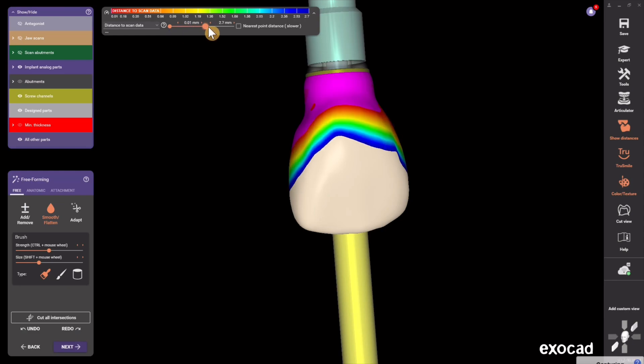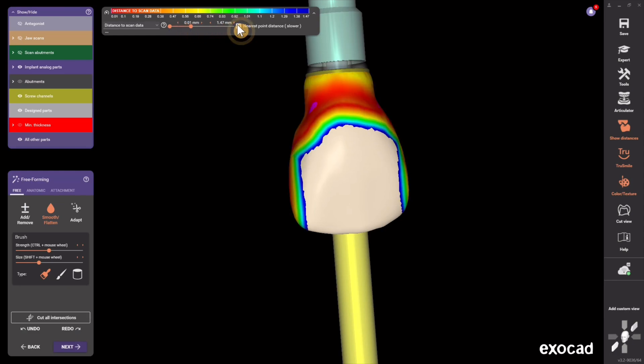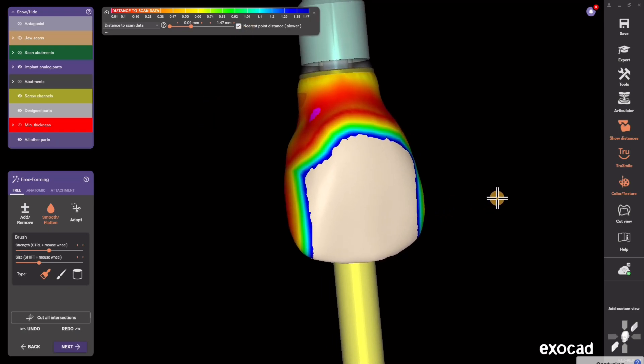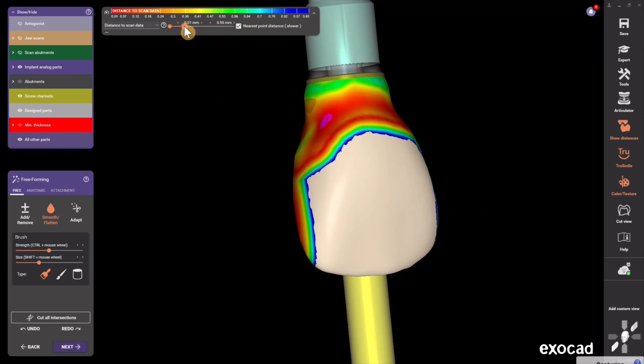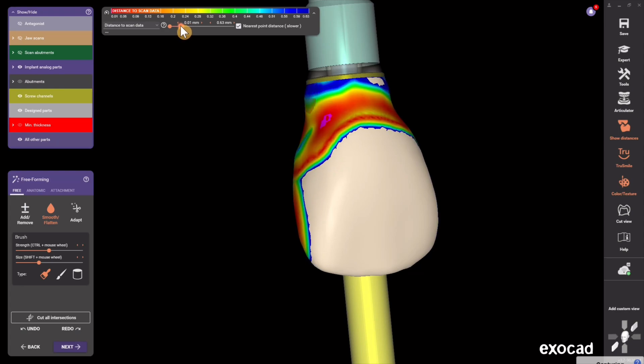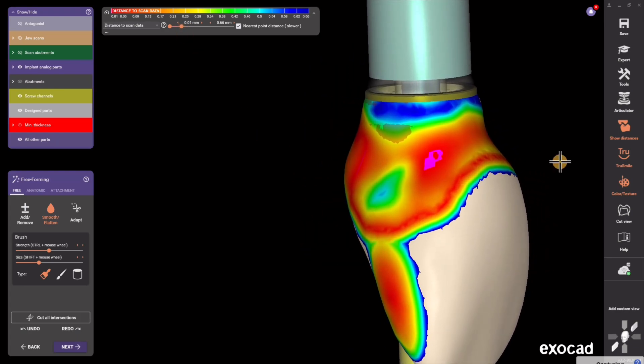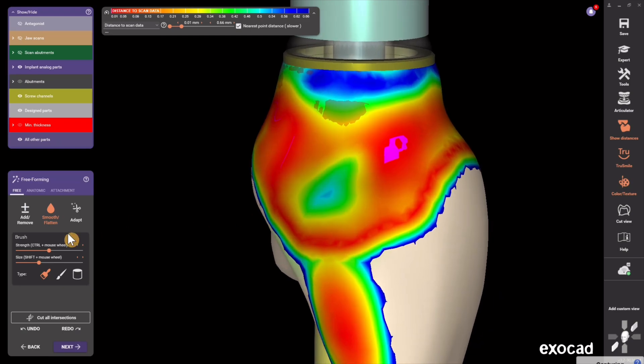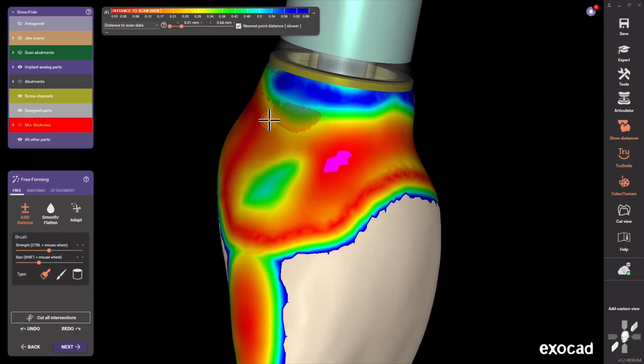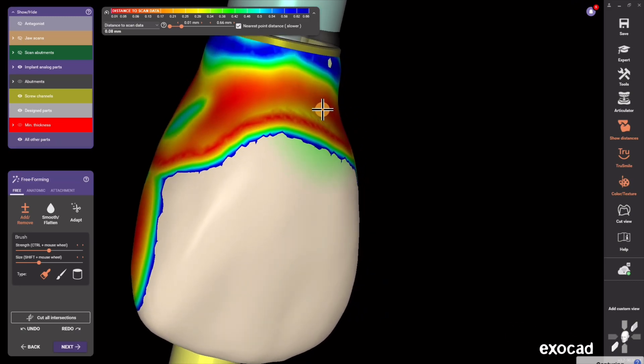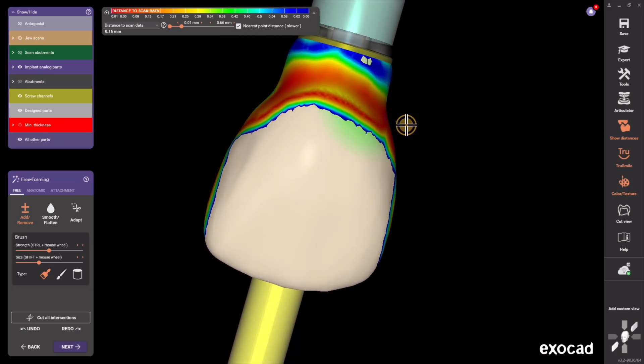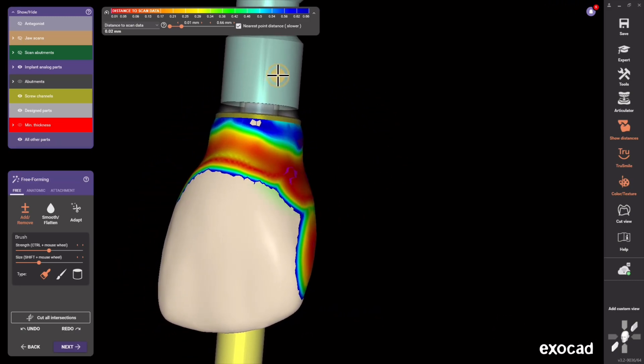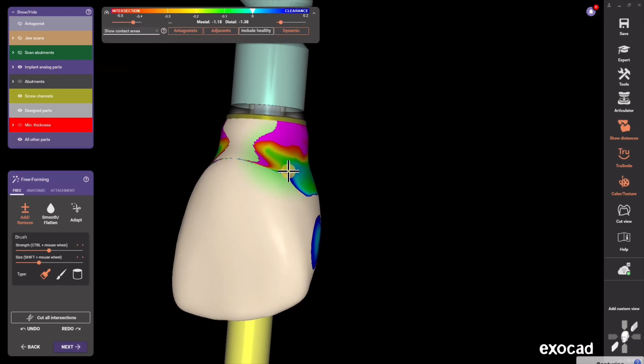I change my scale and I usually hit the nearest point distance, and anywhere between, depending on the area, 200 to 500 microns of pressure. Then blue would indicate negative pressure whereas red indicates positive pressure into the tissue and green represents almost no pressure. You have the color map right there if you're confused about what the pressures are, and you could add and remove and smooth and flatten and all your kind of tools there.